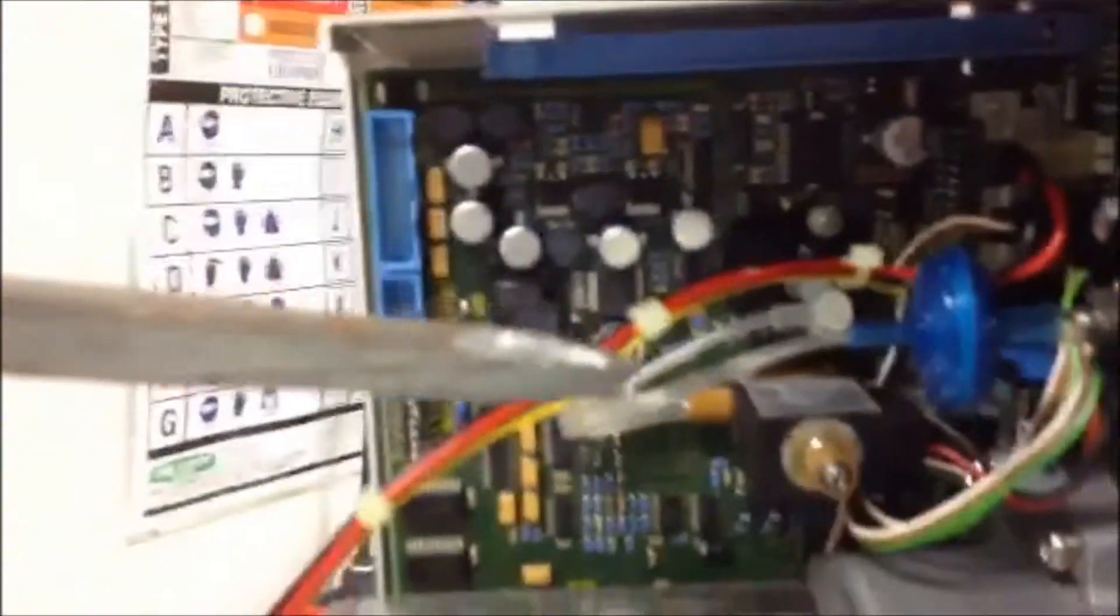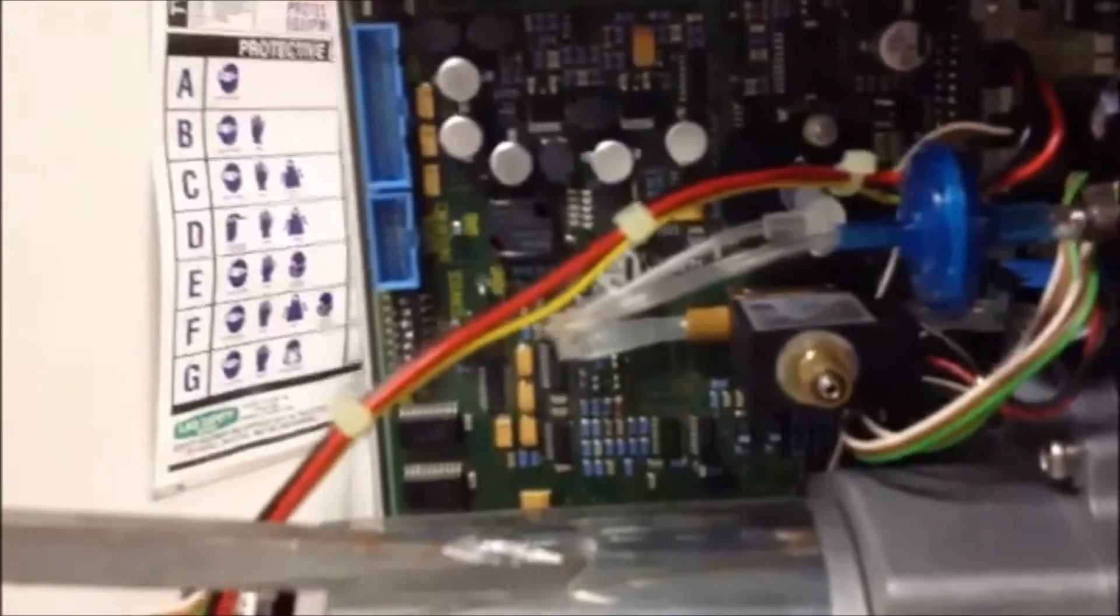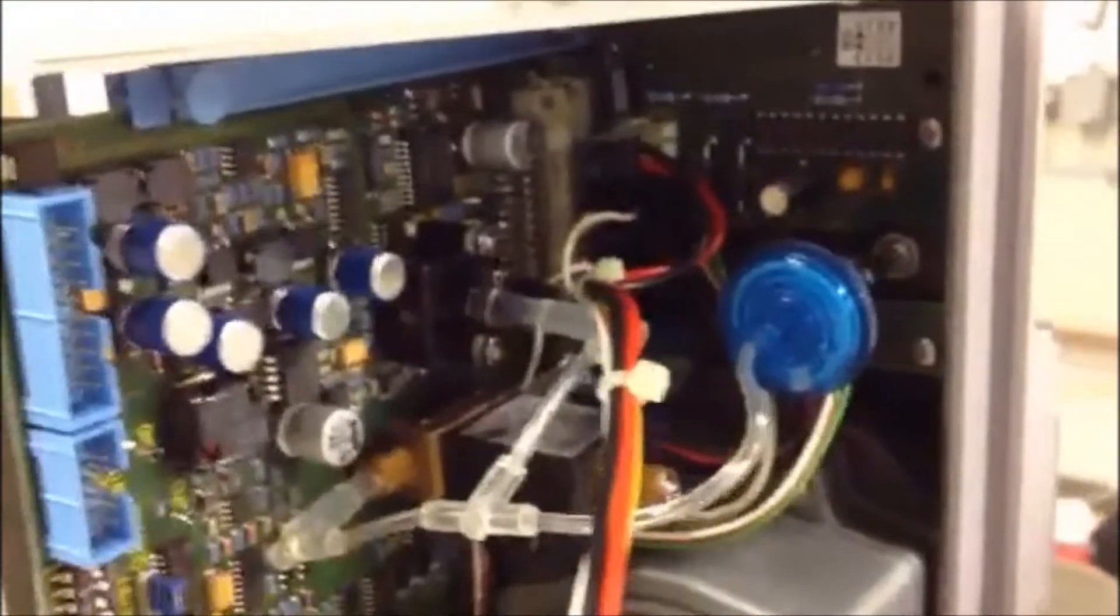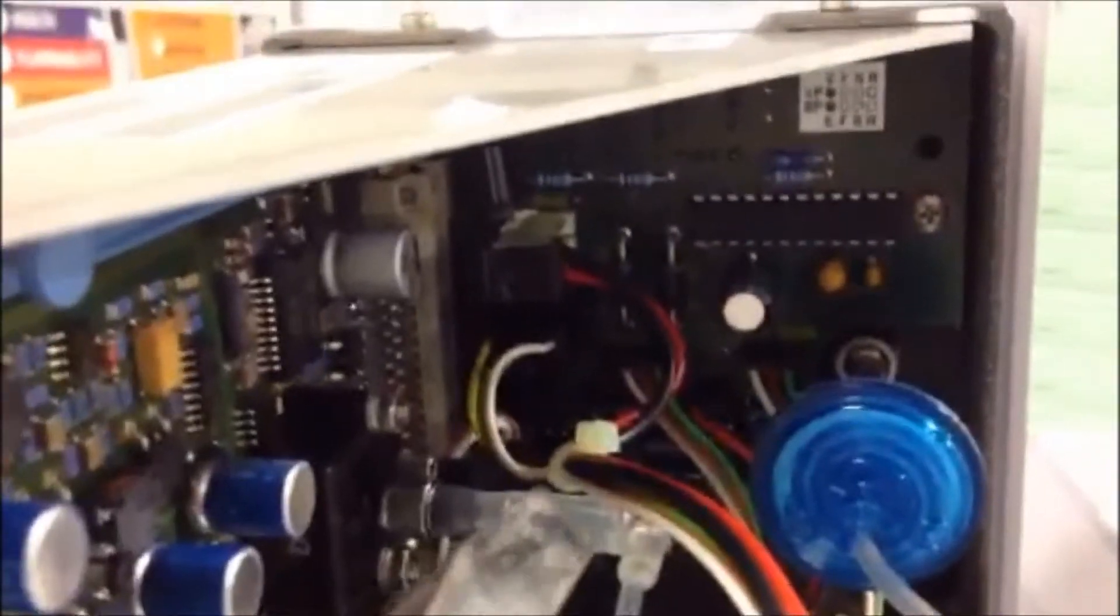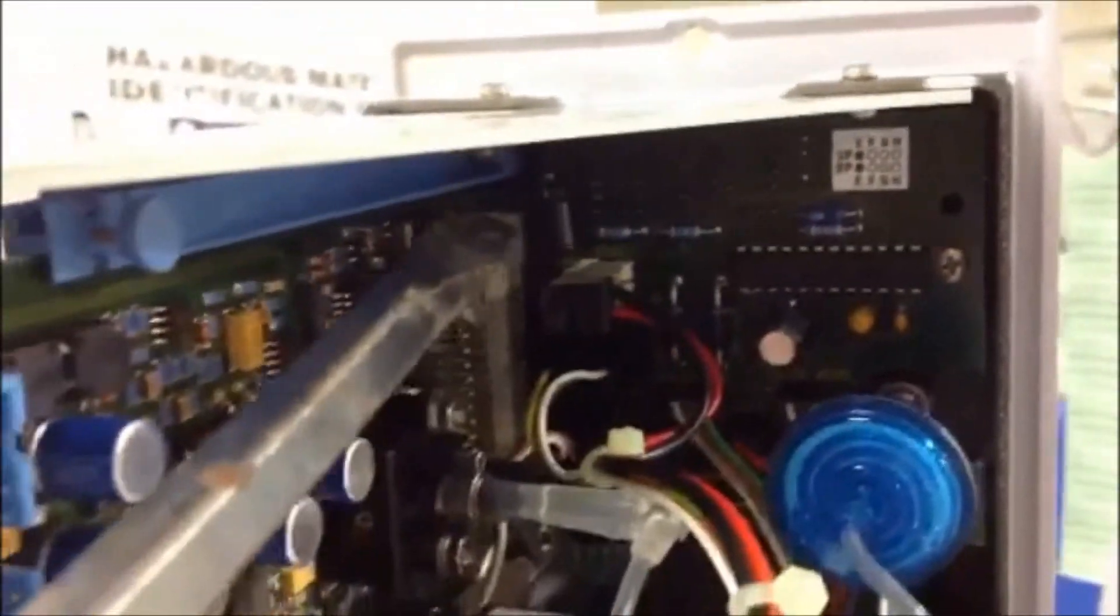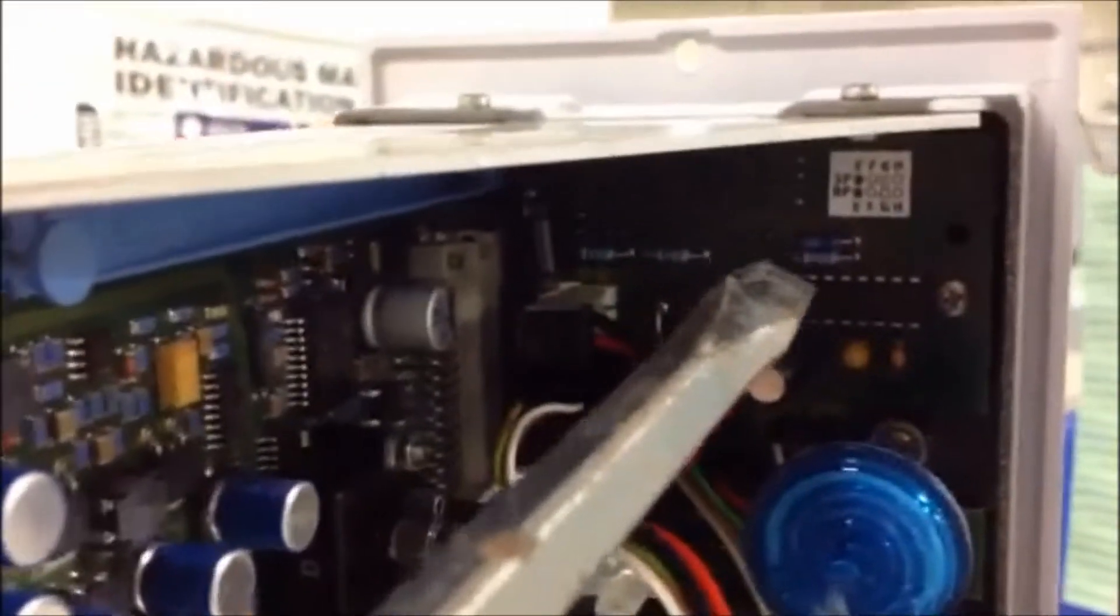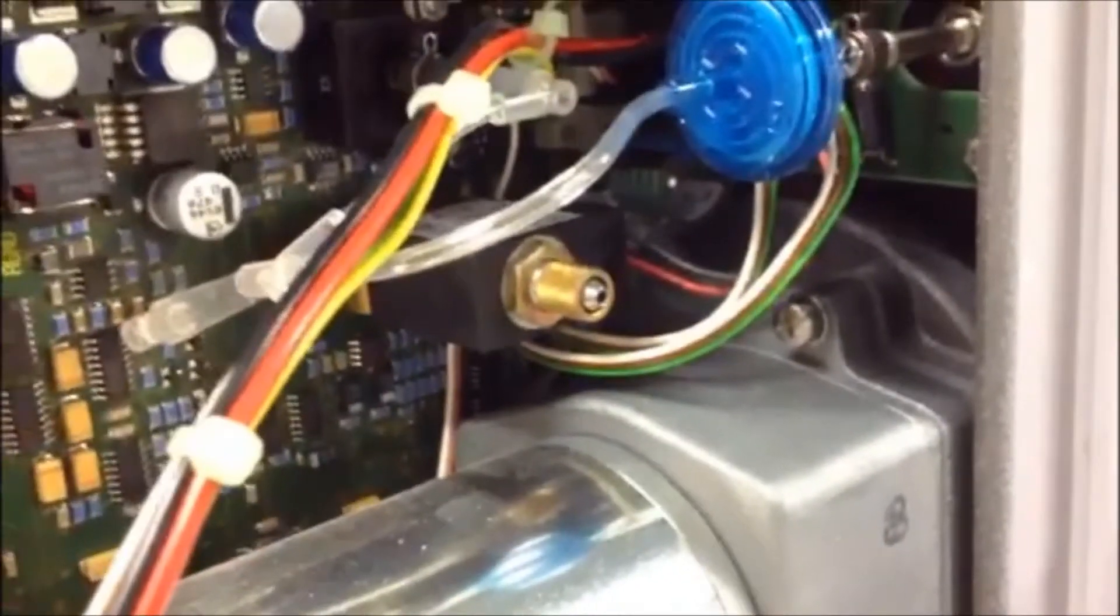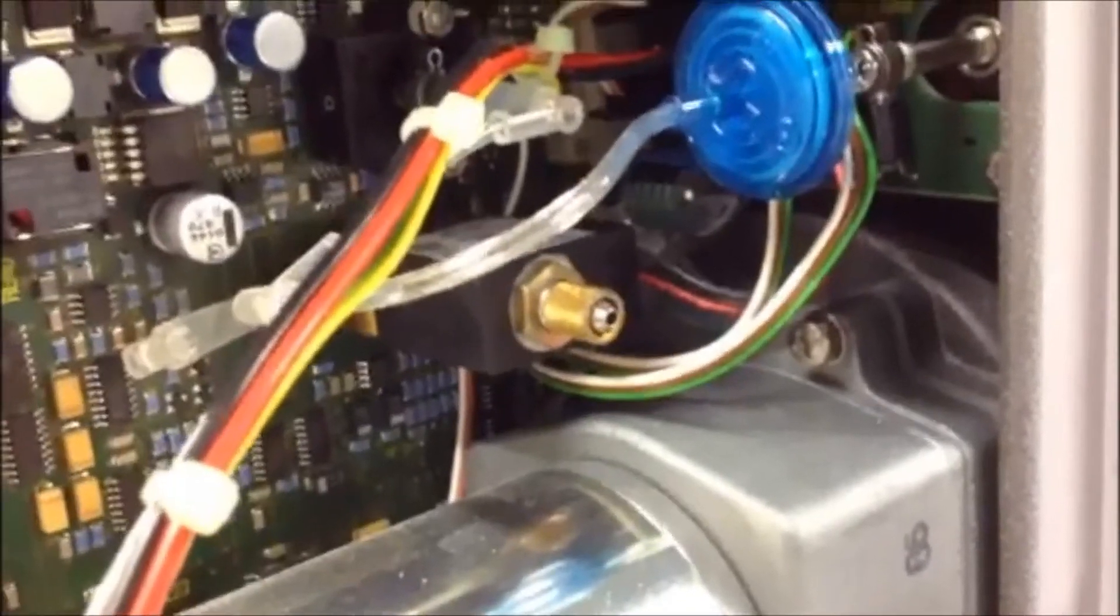None of it is needed for the function of this motor and the pump. The second board also can be removed, which is this board in the back that has one screw here and one screw inside. That board also is not needed for any function for our purpose to isolate the pump for CVVH.